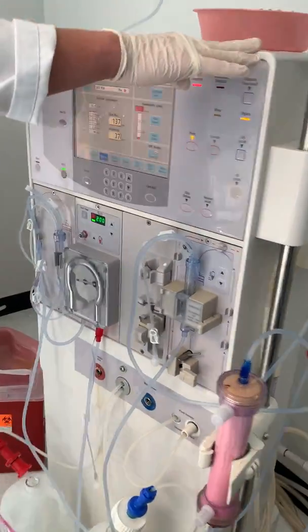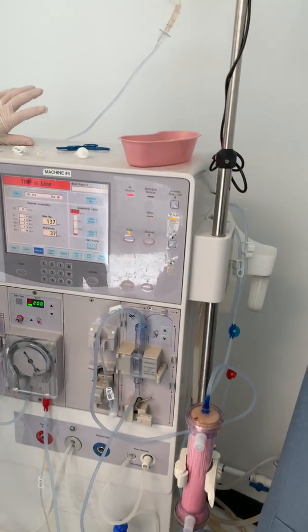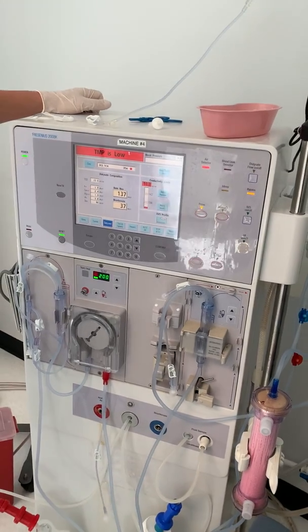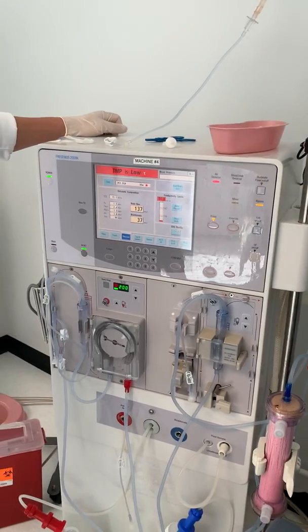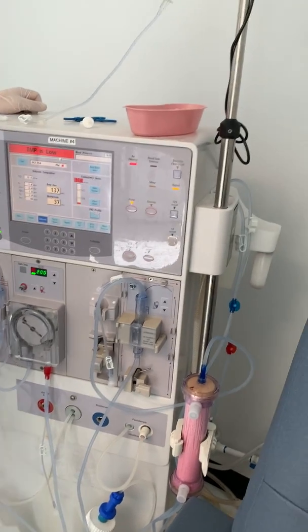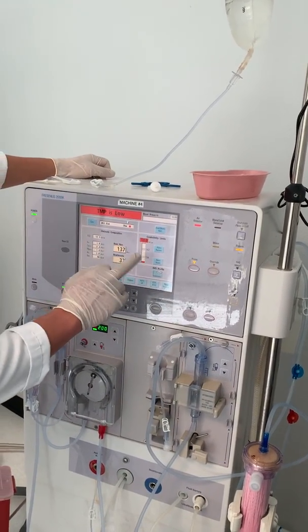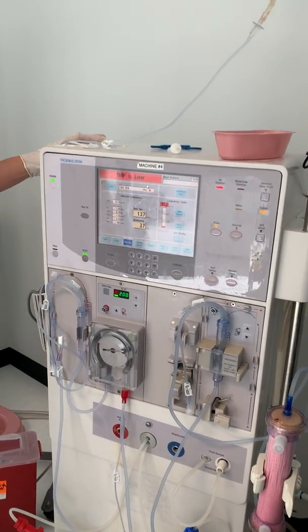That normally would total about 300 with the arterial draining. As you notice, our conductivity is still on 10, so I think one of these is not working right now.